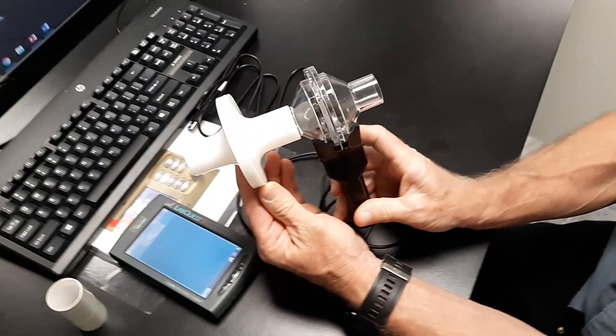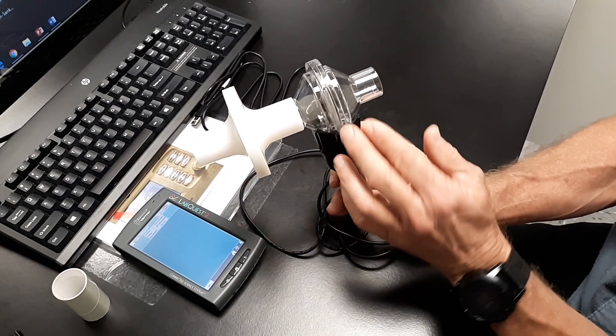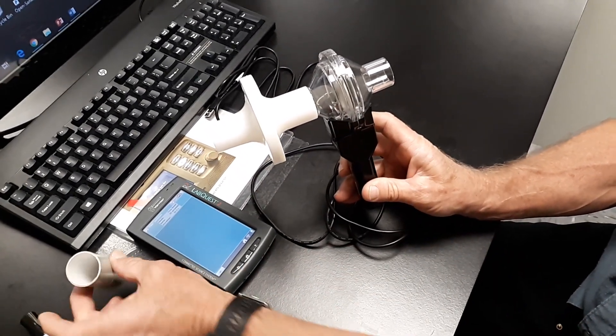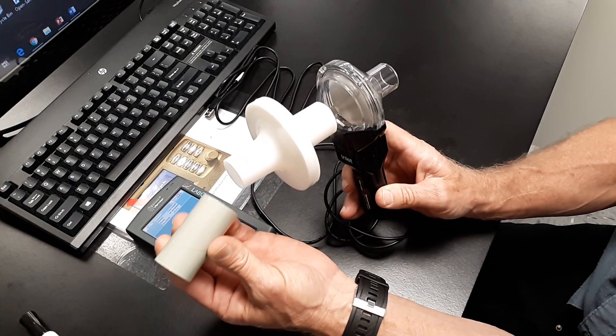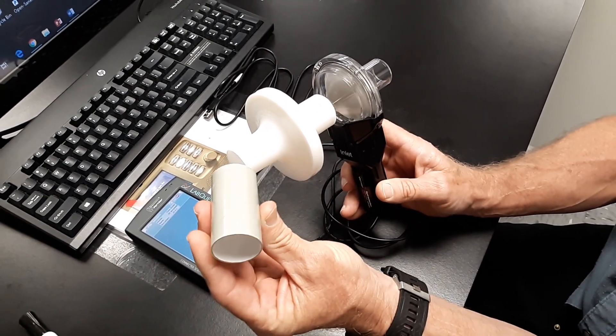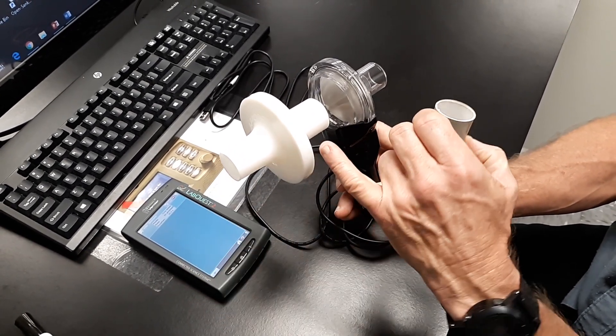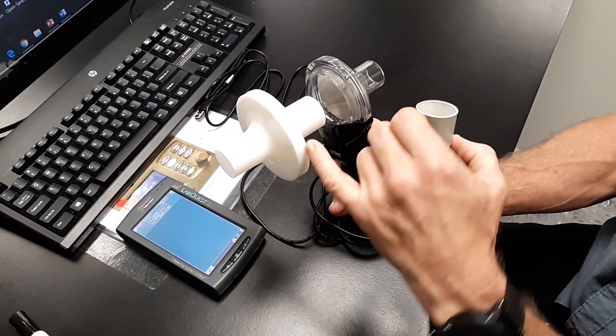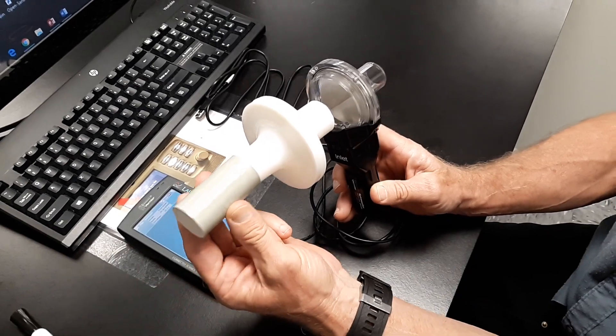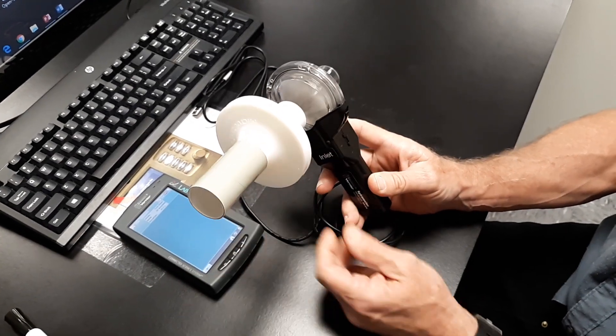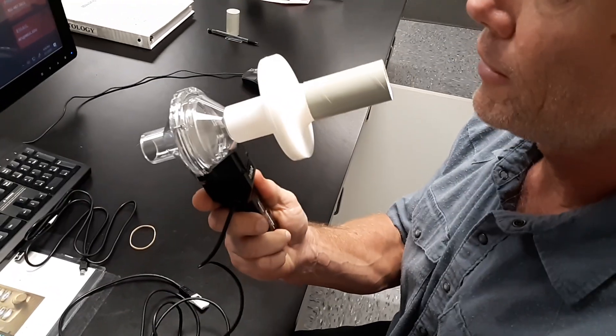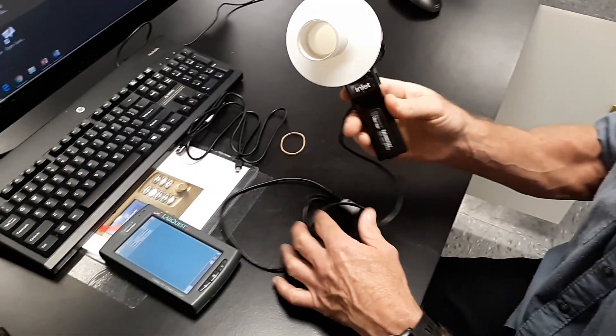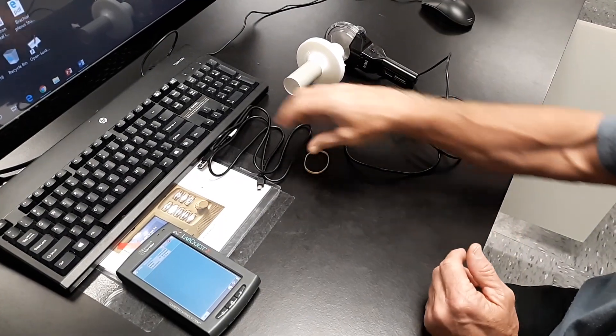I guess, will fit onto the spirometer itself. And then you're going to take your little tube here, little cardboard tube, and these are going to be individual use. So if you have a couple of people using it, you need to get a new bacteria filter and you need to get a new tube. And you're just going to put that tube right over top there. So that's what you're actually going to be breathing into when we set it up. You can set that just aside for a second.